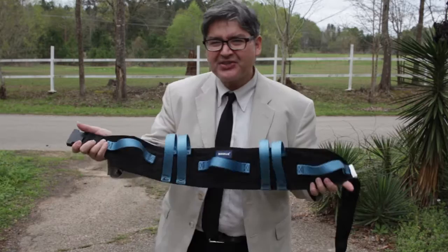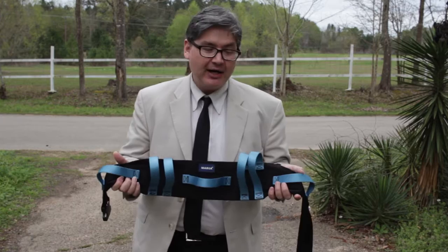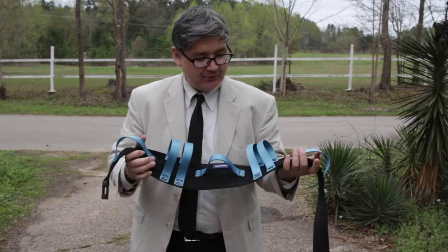So I highly recommend getting one of these. This was about 16 bucks, so for under $20 to have something that's going to help one of your loved ones or your friends be able to have some mobility. You can help them walk down the stairs. If you're a physical therapist, you're going to use this to help them get their strength back in their legs and do various exercises as well.